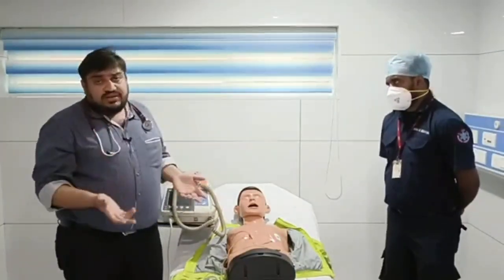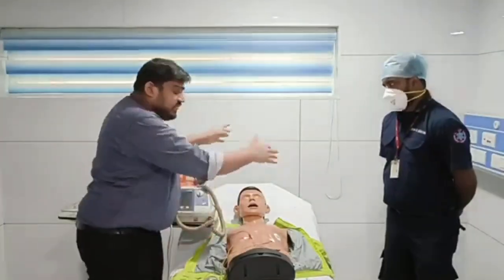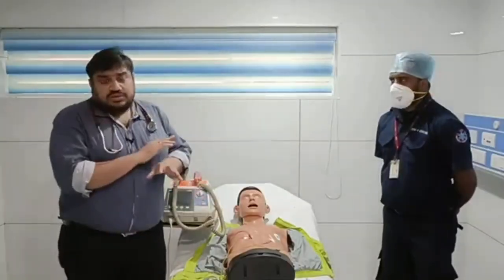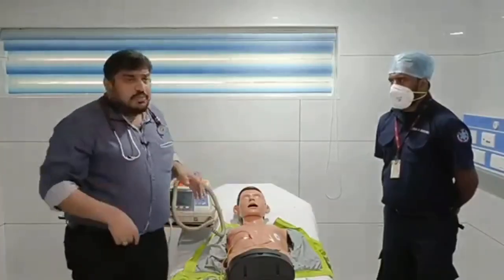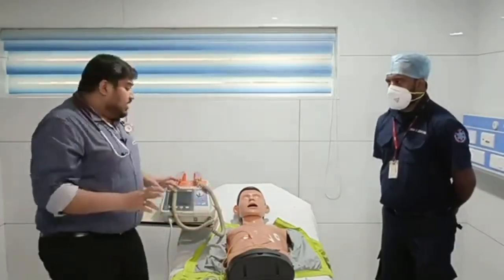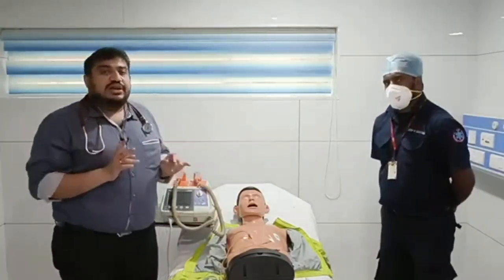And before delivering the shock, you have to make sure you are not touching the patient, no one else is touching the patient, and everybody is clear. You literally need to shout. I am not just saying it, you need to shout, because another person will be thinking something else in mind, and he will be resuscitating the patient and he may be touching, maybe putting an IV line at the time this is happening. So there should not be any confusion regarding that. You should be shouting and you should be delivering the shock. So that is regarding your defibrillation.